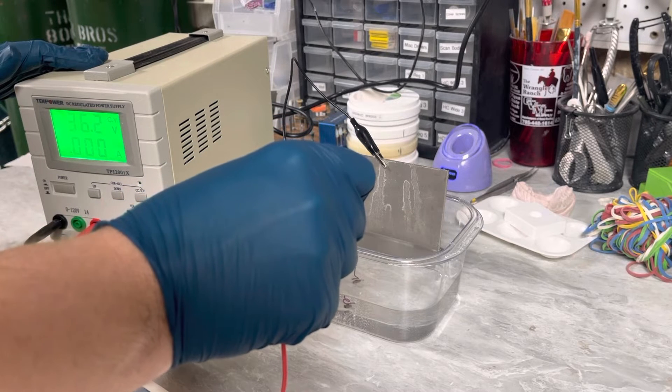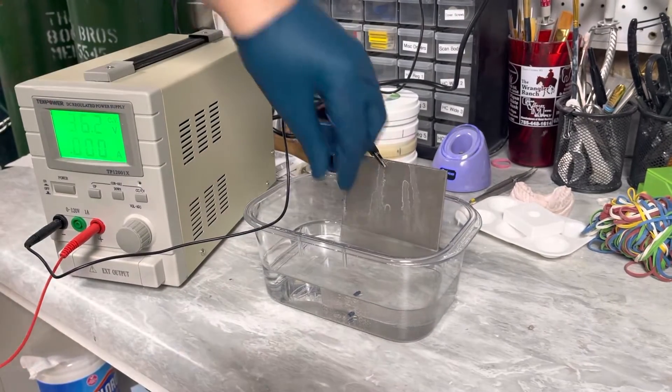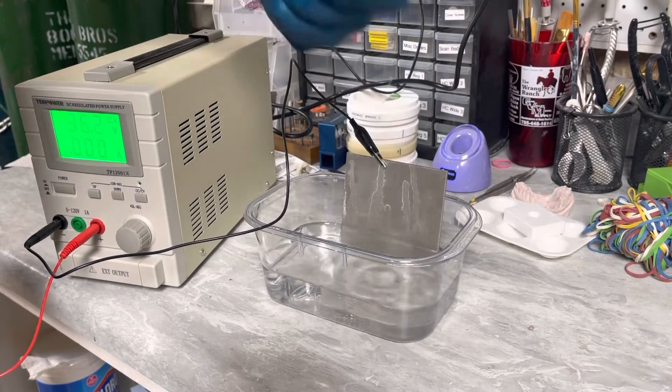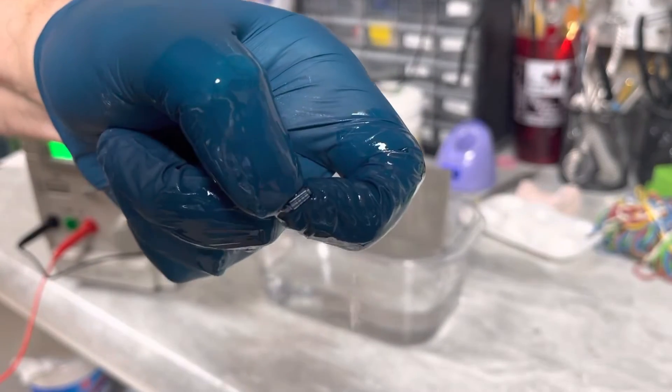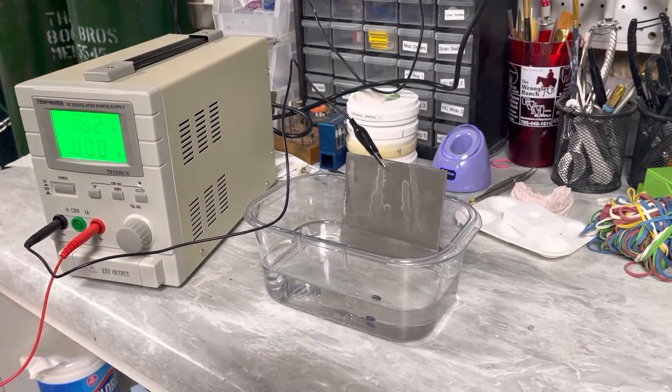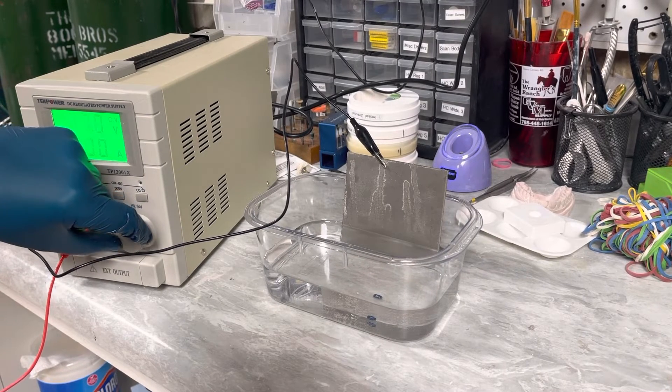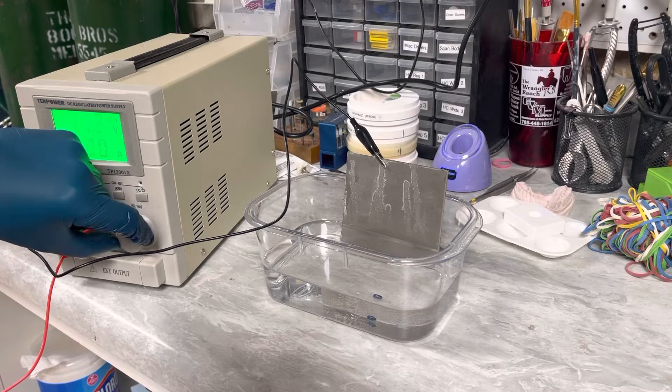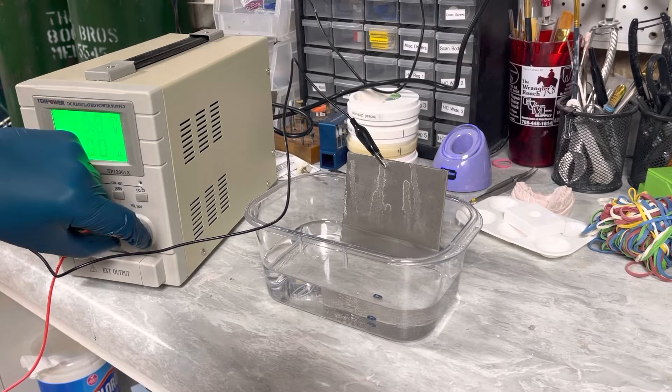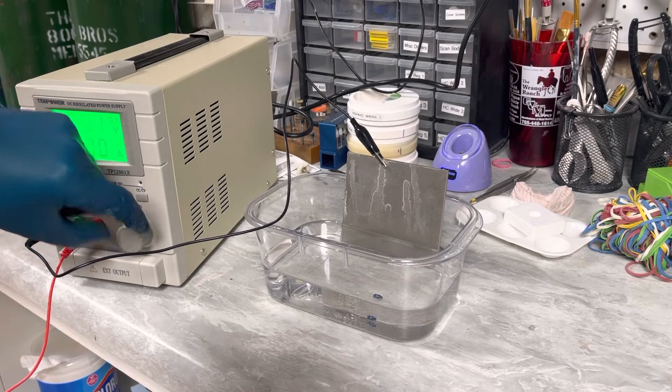And so you can see that turned this very cool blue color. Okay, so but obviously I don't want a blue abutment, I want gold. So I'm gonna bring this up and we'll do it to 55, see what that looks like there. Okay.